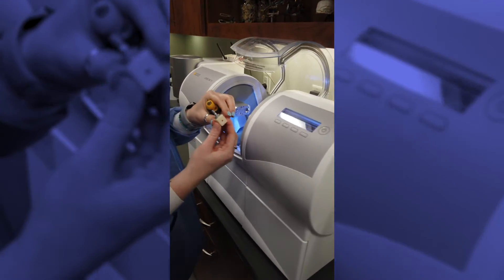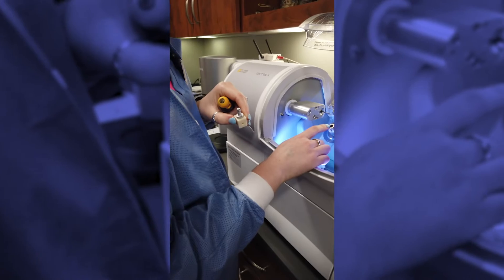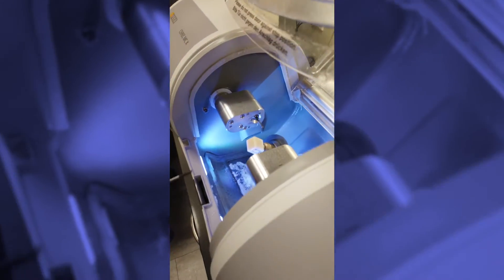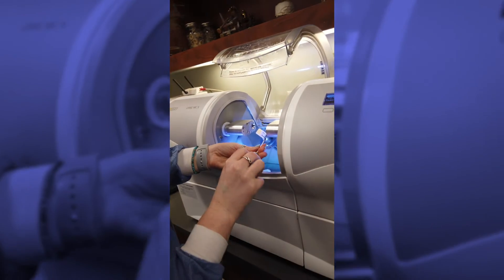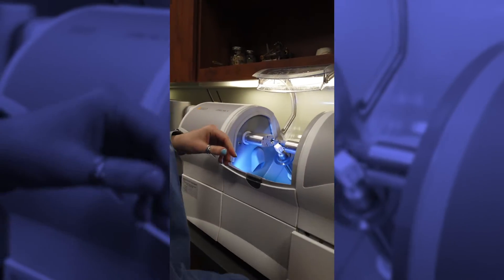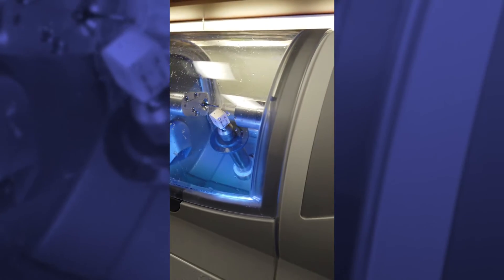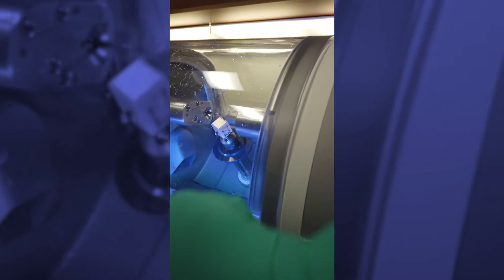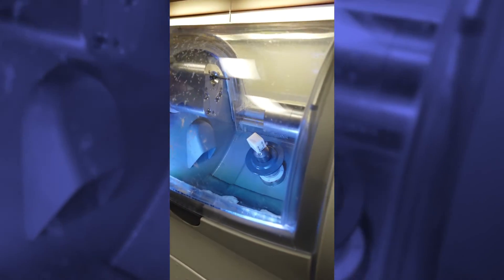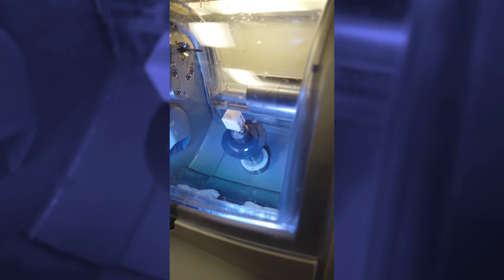So there is a little notch right there, and we're gonna put it in there and line it up with that little notch. You'll hear that click. Then you just tighten it down, finger tight, close the door, and it will start going. Like those machines that make coins? Yes — that's how you engrave it, except it's a tooth. It's a tooth that you put in your mouth — way more expensive, not a coin you put in your pocket and forget about it.